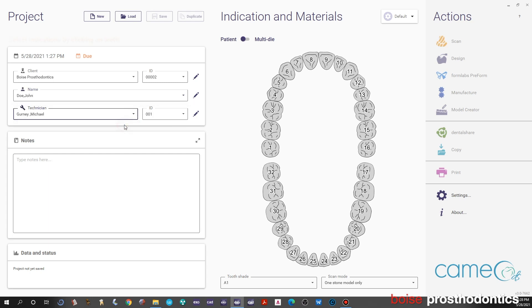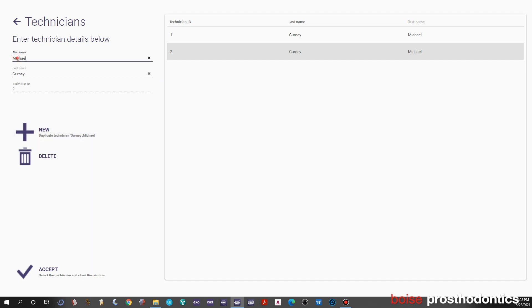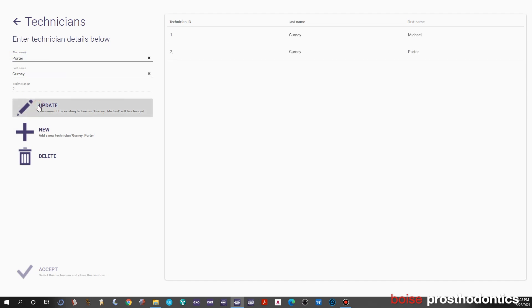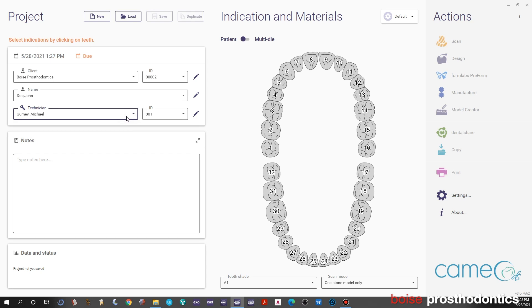Click on the technician and you can add a technician if you'd like by clicking edit, then add new and typing in a new technician's name, then update. If you haven't added yourself yet, you can add yourself that way and select one. We're going to stay with the original technician here and we added the name John Doe for the patient.